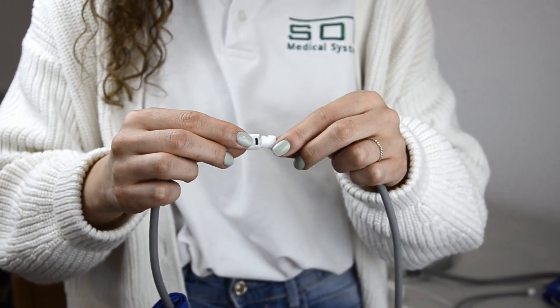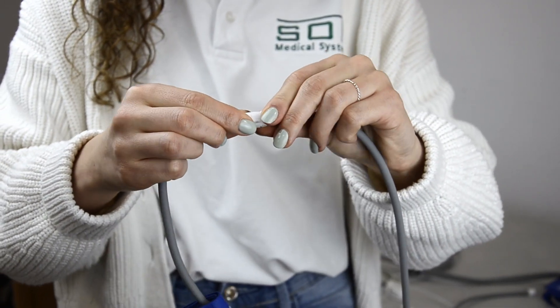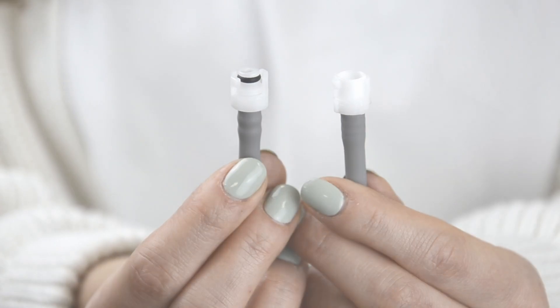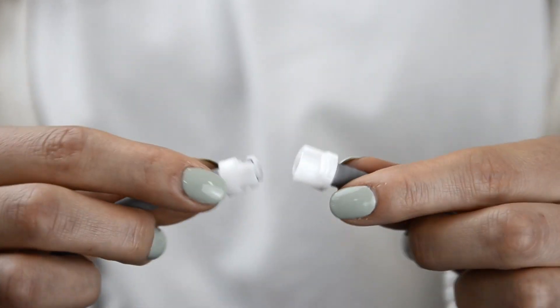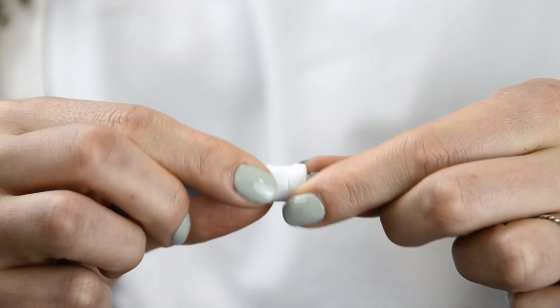At the other end of the hoses you have to connect the cuffs. The connectors can be plugged together and then twisted until you hear a clicking noise.